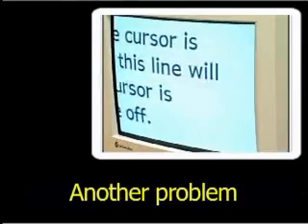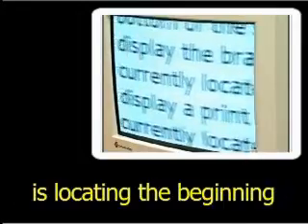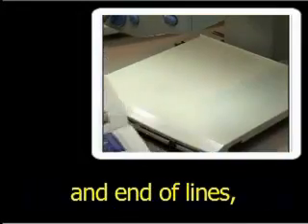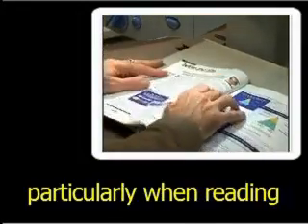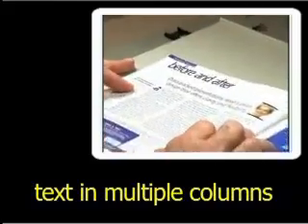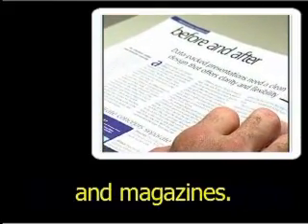The enlarged text now moves smoothly, horizontally, in a right-left manner. Another problem encountered by some users is locating the beginning and end of lines, particularly when reading text in multiple columns such as newspapers and magazines.